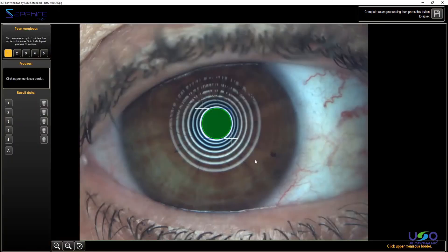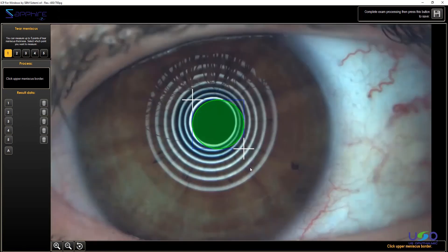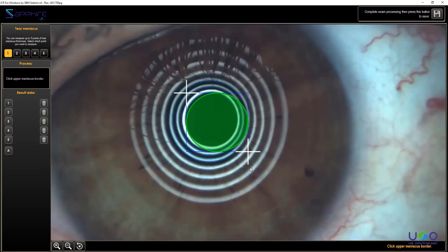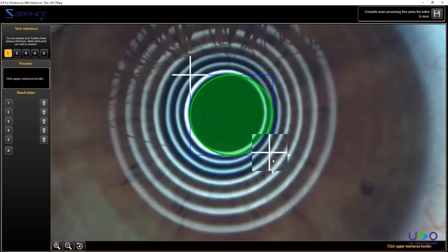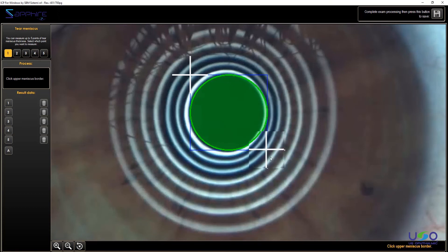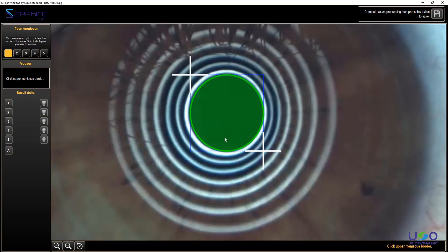The first thing you have to check is the position of this green circle. If you see now, it's automatic, but maybe you should take care of it because maybe the detection was wrong and you were finding a situation like this, where the green circle is not inside the placido rings. In this occasion, you should take the white arrows, the white crosses, and slide the circle exactly in the middle of the inner ring of the placido ring cone.